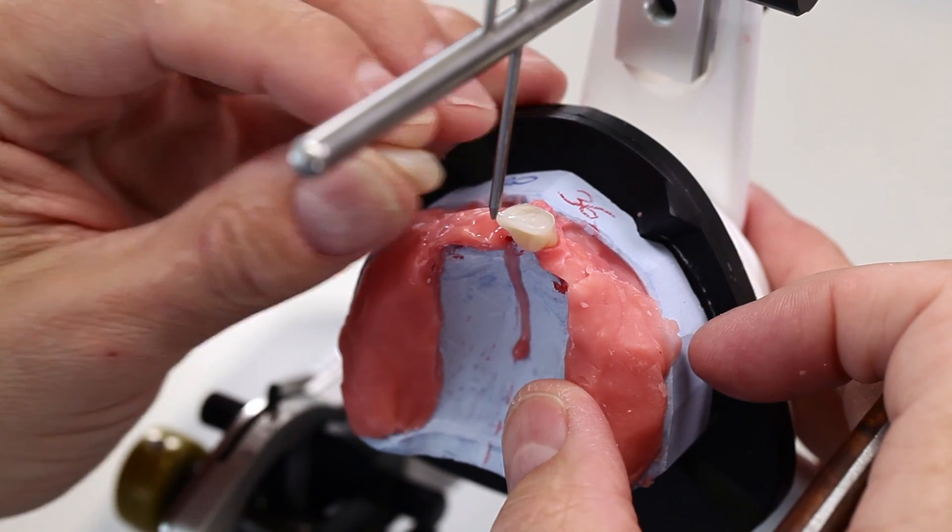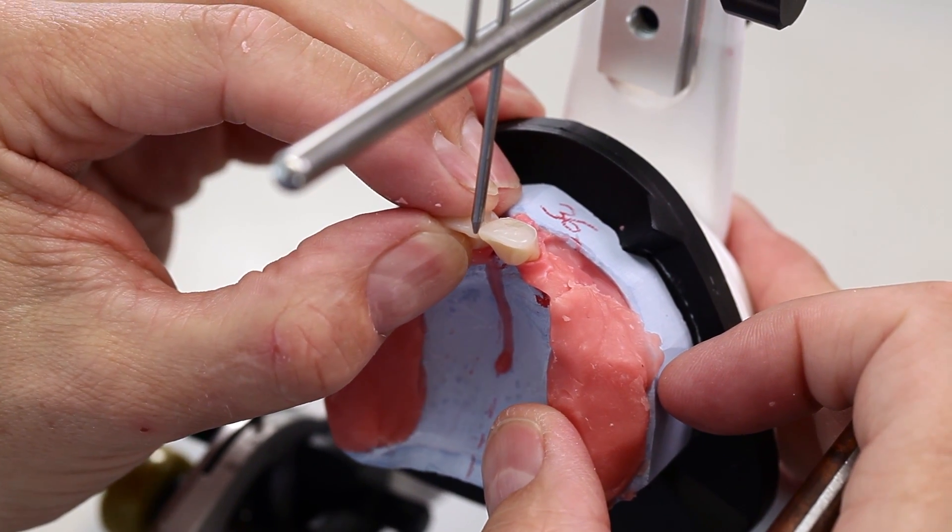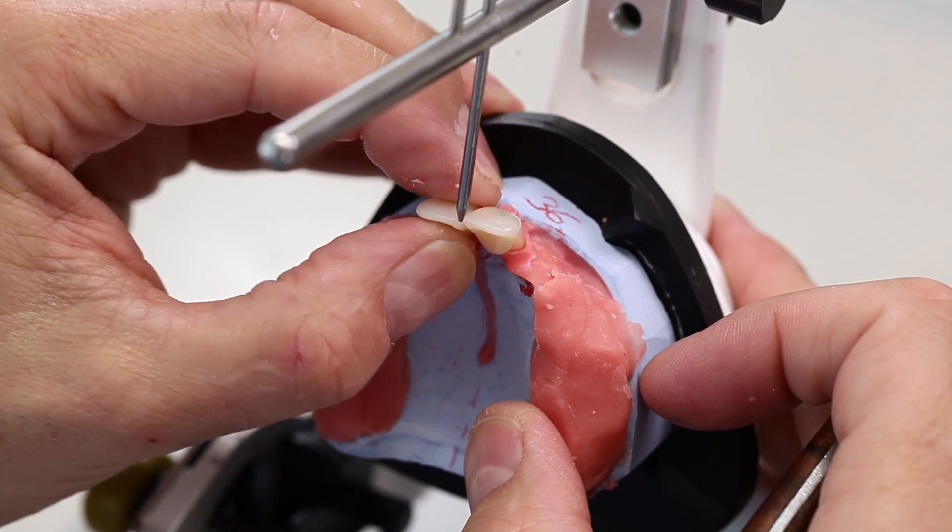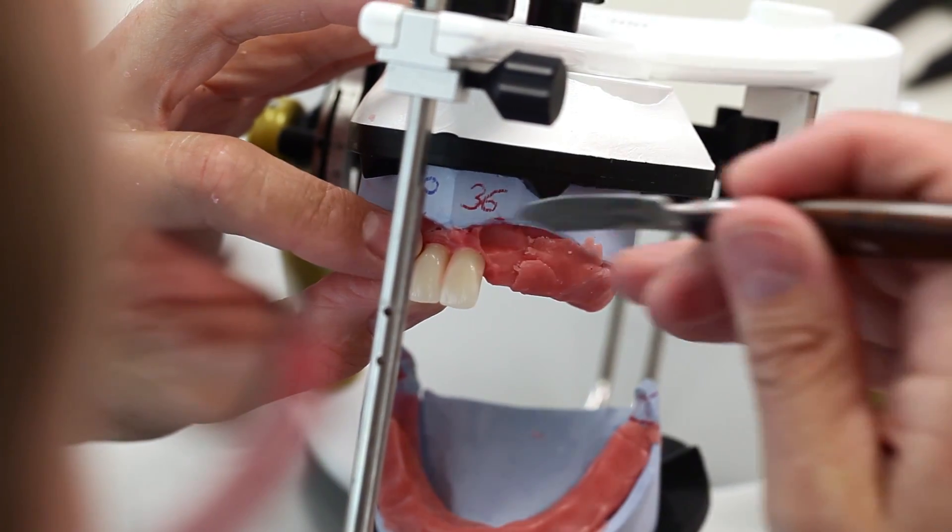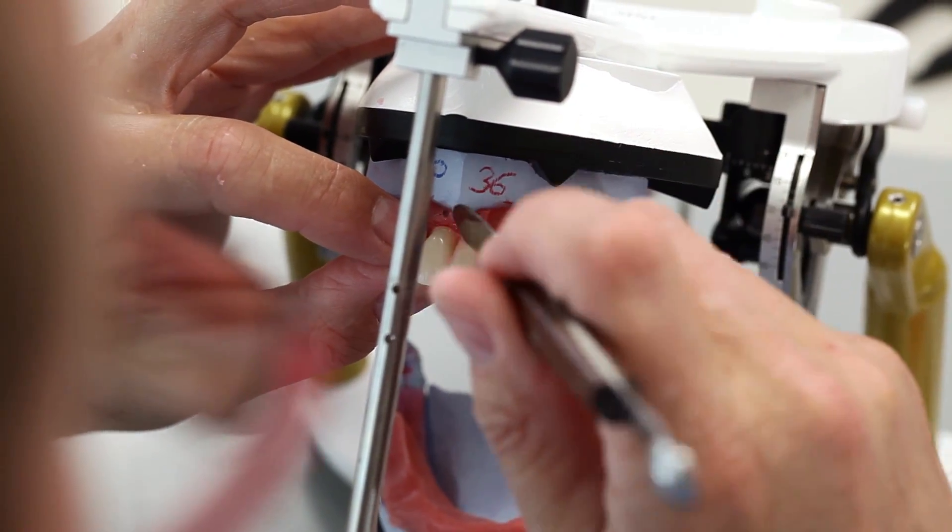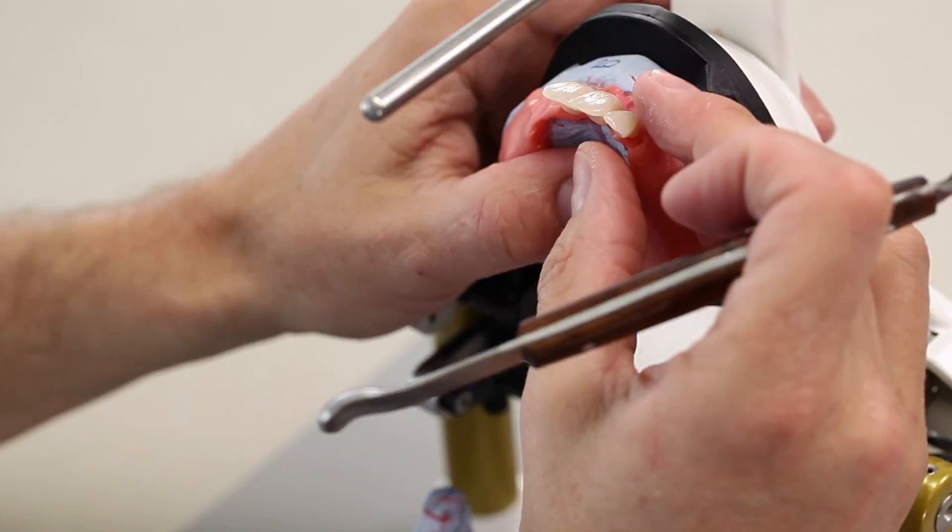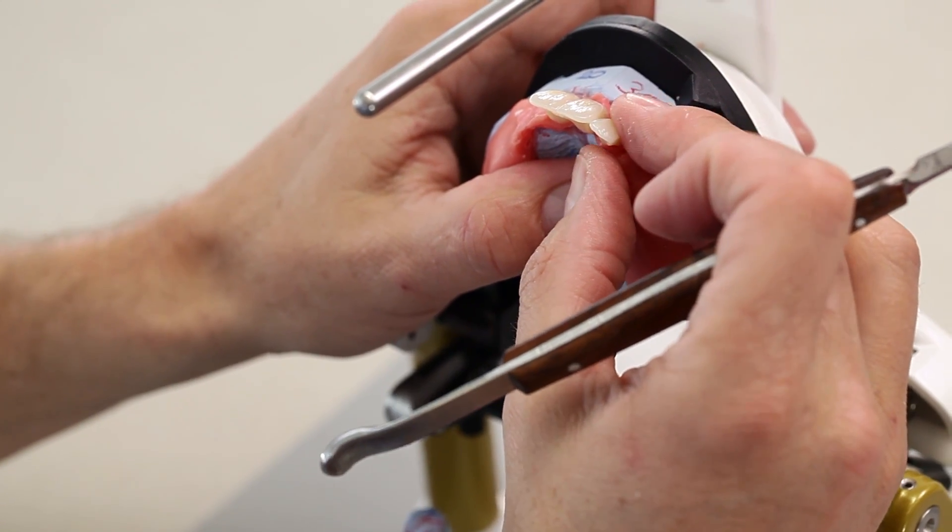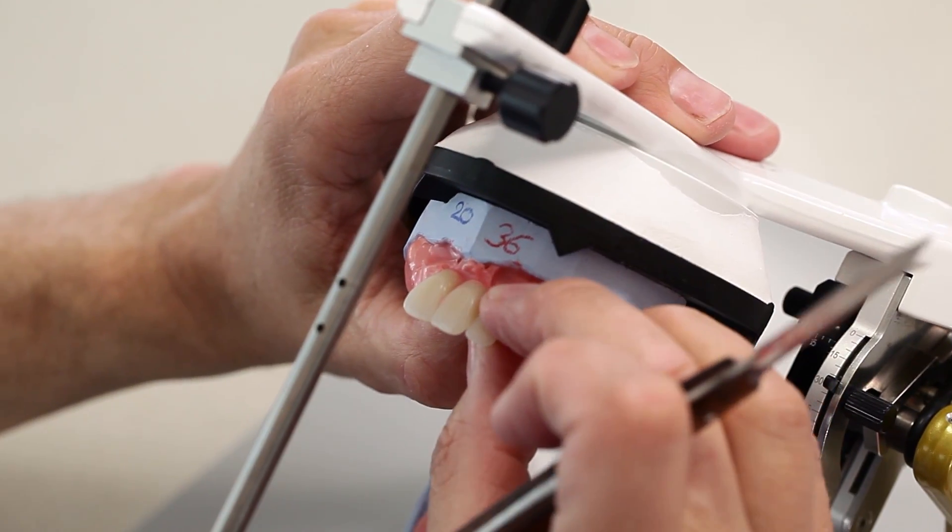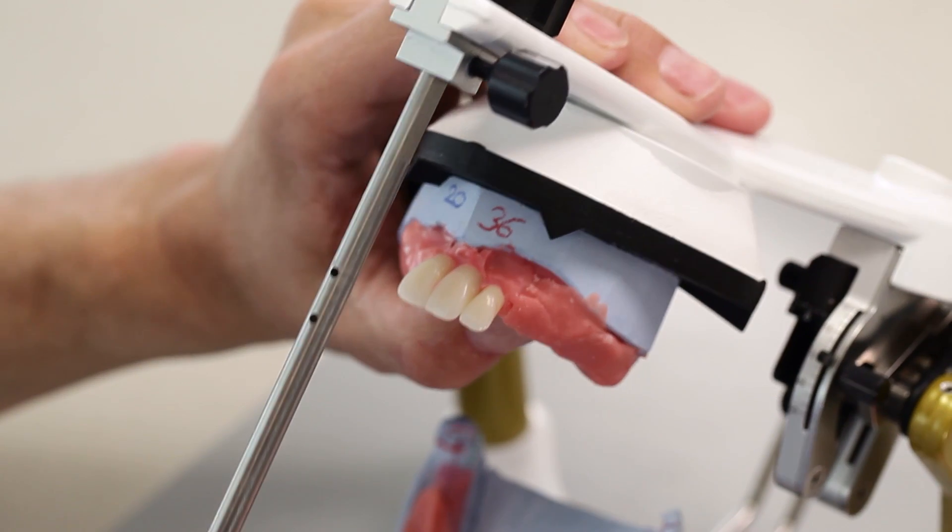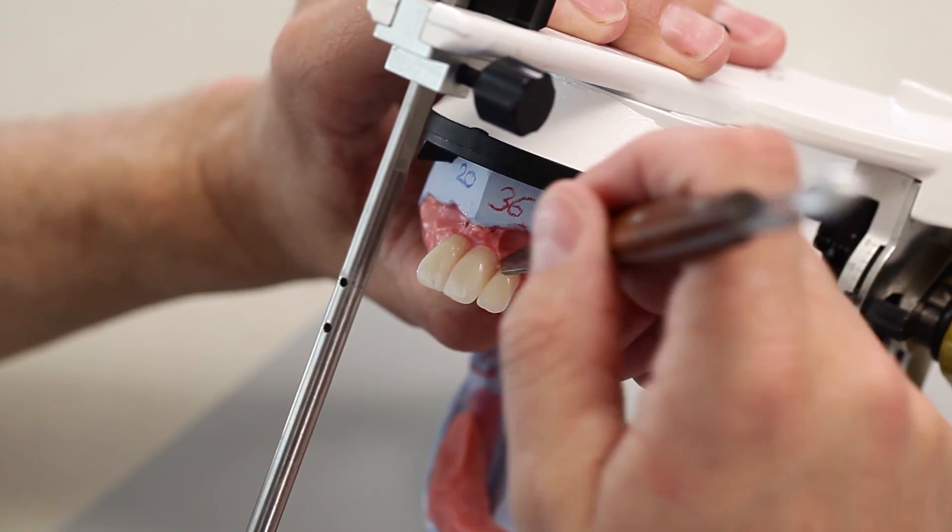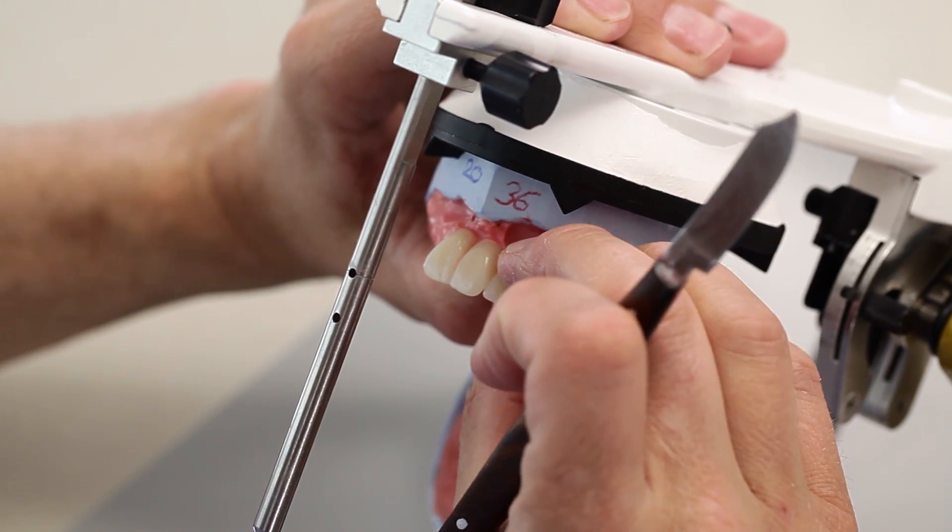Align the two central incisors mesially towards the midline. The central incisors are set up perpendicular, the lateral incisors are set up slightly inclined towards the mesial aspect. Usually, the maxillary incisors point toward the lower mucolabial fold in a bow direction. Their labial curvature harmoniously blends in with the vertical anterior tooth arch.